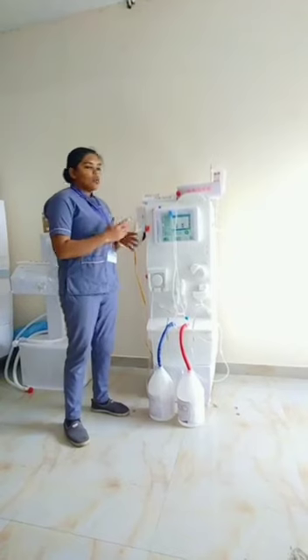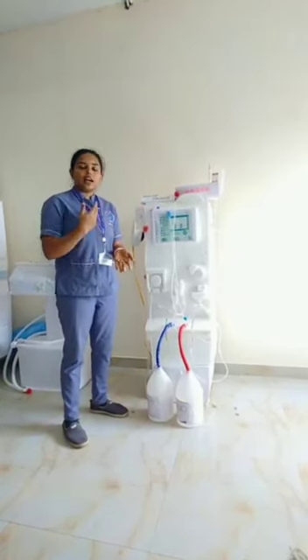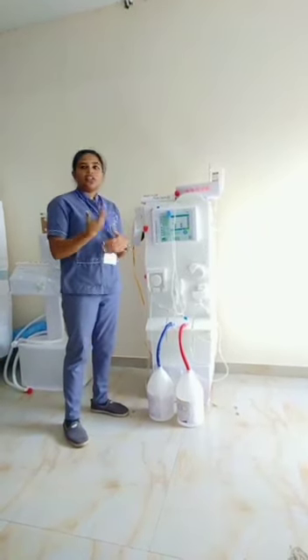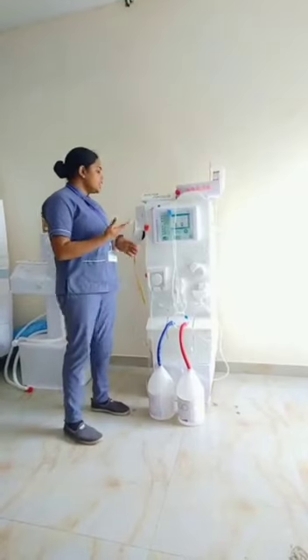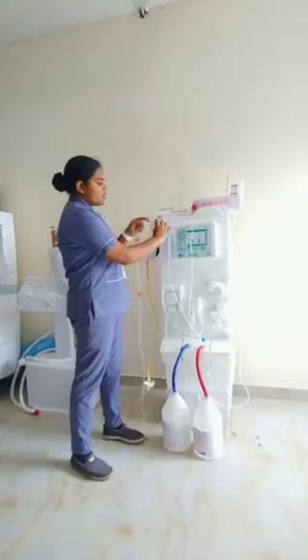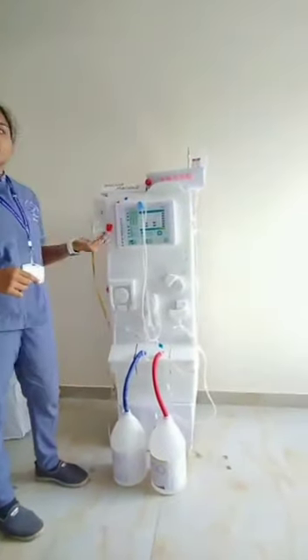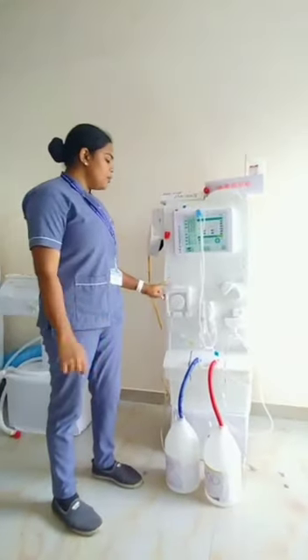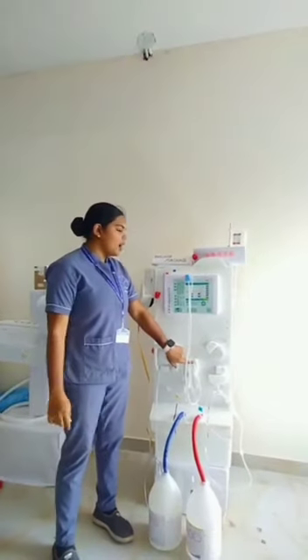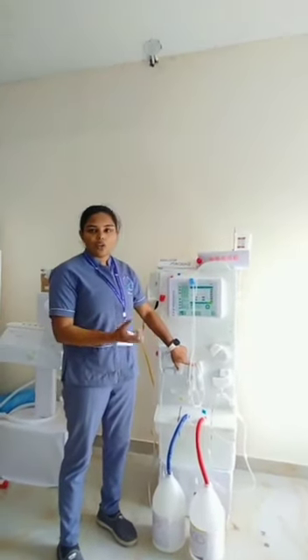After monitoring all the vitals of the patient, we will connect the needle to the arterial side — blood is taken into the machine for the dialysis process. The blood from the patient is taken through the red wire, from the red needle, into the machine through the blood pump. The blood is pumped through the blood pump, and there is a connection of heparin, which is an anticoagulant that will prevent the clotting of the blood.